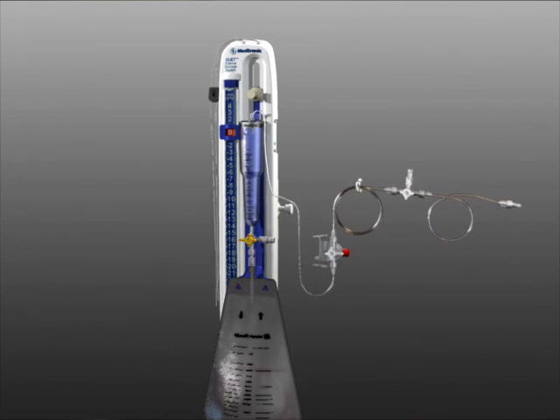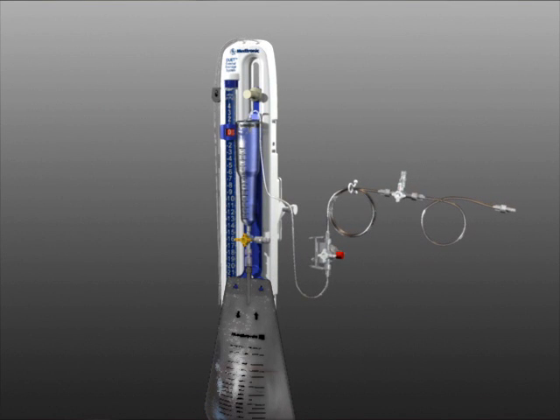The DUET external drainage and monitoring system by Medtronic NT is a complete system for the external drainage of CSF and monitoring of intracranial pressure.